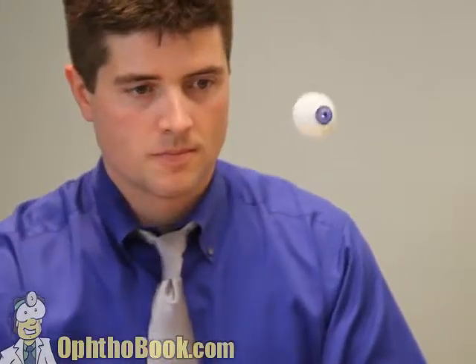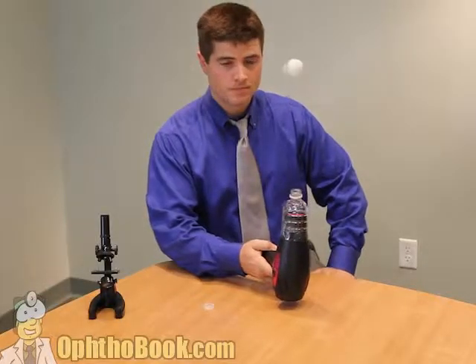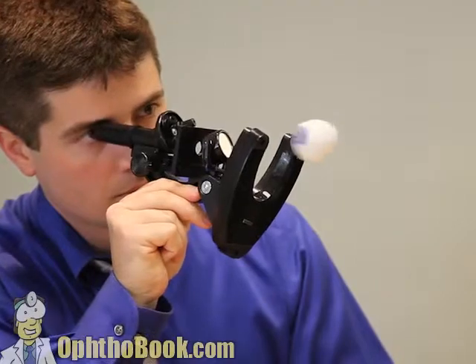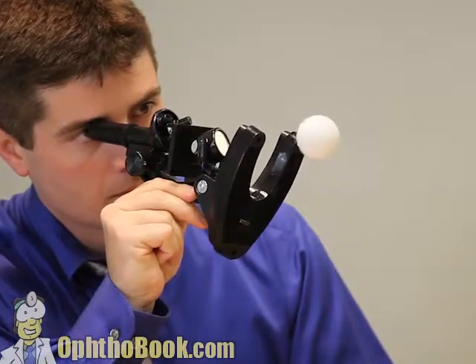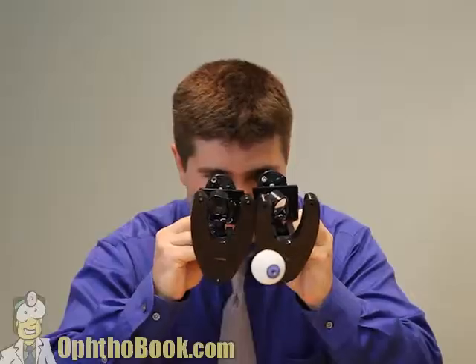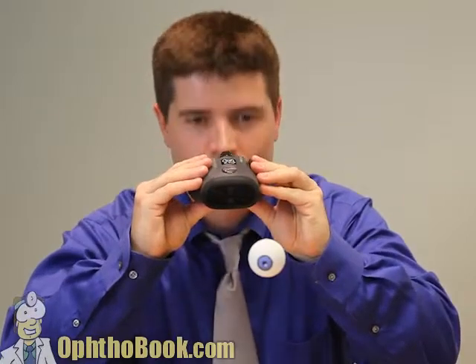Our patients don't like to lay flat — they like to sit up. So we need to take a microscope and move it to a horizontal axis so we can look at the eye. Let's improve our design by creating a binocular microscope — two of them — melded together into a single unit so that they're in focus and synchrony with each other. This is basically the perfect microscope so far.